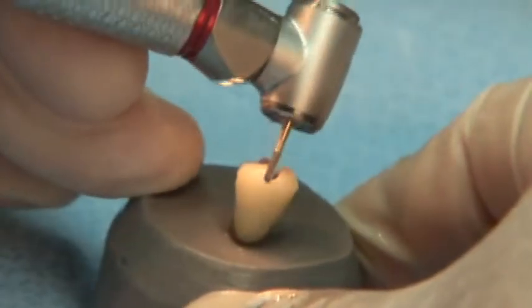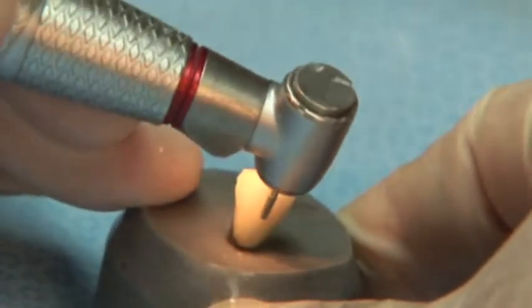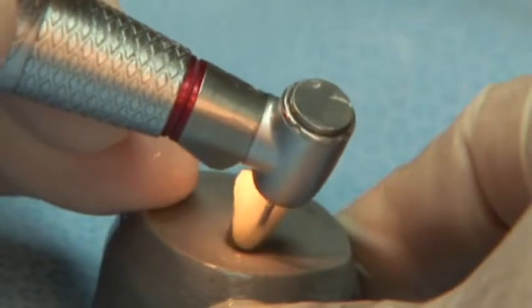Whether your need is cavity preparation, endodontic access or restoration removal, SS White has a Great White Burr that is right for you.